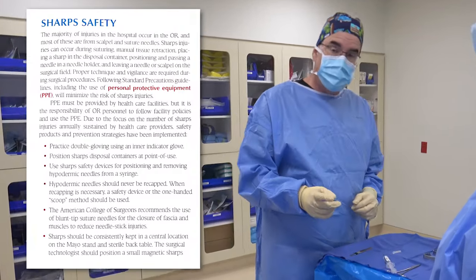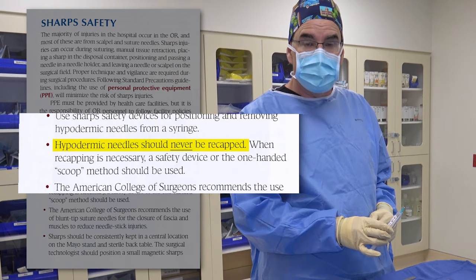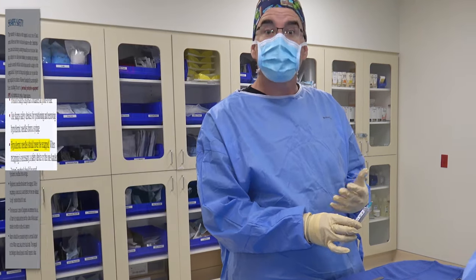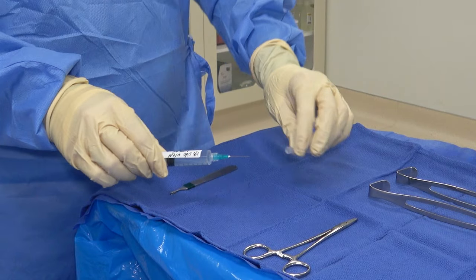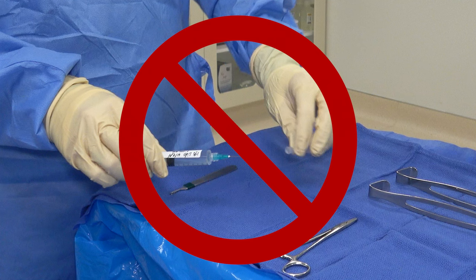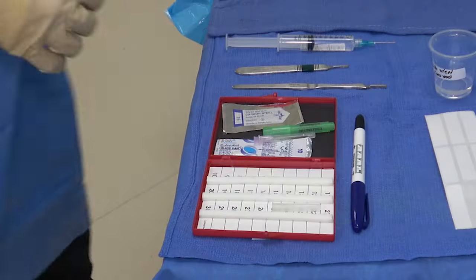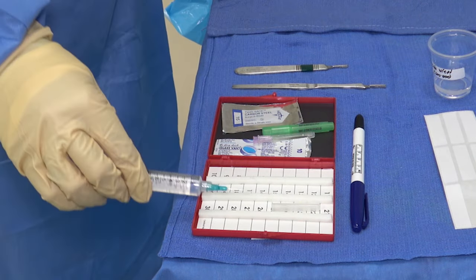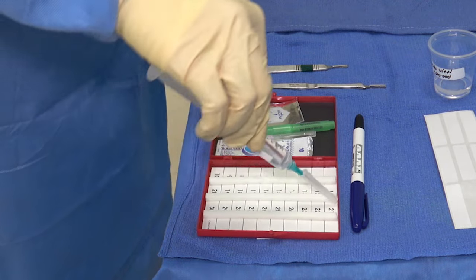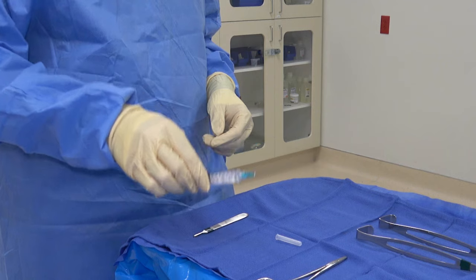You never ever recap a needle — now let me show you how to recap a needle. You're not going to just place the cap back on the needle; this is super dangerous and many people have been stuck doing exactly this. Instead, you have two options. The first option: place the cap in your needle book, insert the needle, turn it vertically, and press down until it snaps.